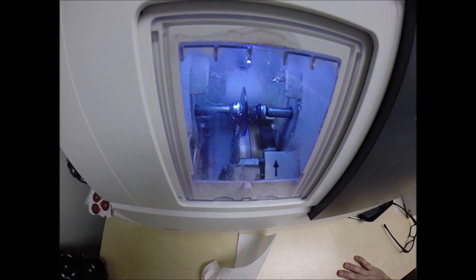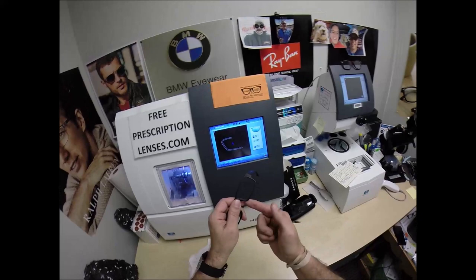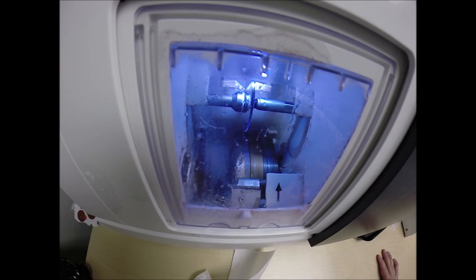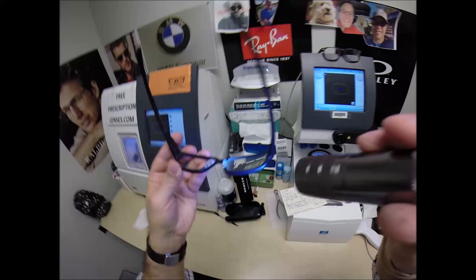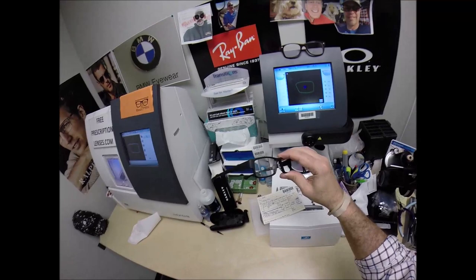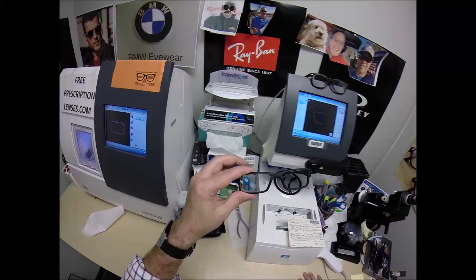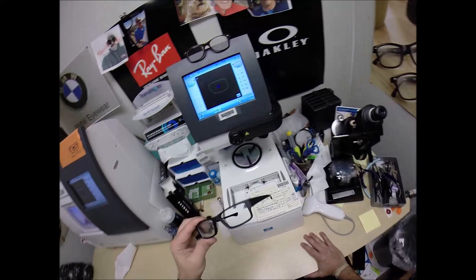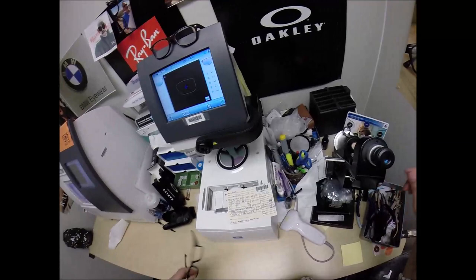So flip that over to L, press the magnet on there firmly, place it into the chuck. It's flipped over, it's going to be traced by the two white styluses making sure the lens is large enough to fit into the left side of the frame, and then measuring the thickness to know where to place the bevel. Matt, you got nothing, you see that Angie, you see that Remy, you got nothing, no edge thickness whatsoever. You're getting a pair of Oakleys with the silver mirrored lenses, you just won in basketball against the Carolina Tar Heels and you're going to win the national championship tonight.